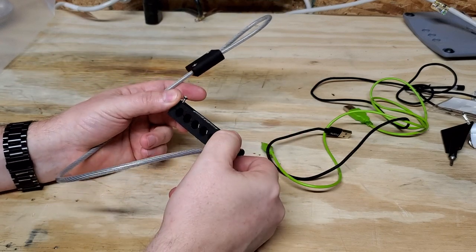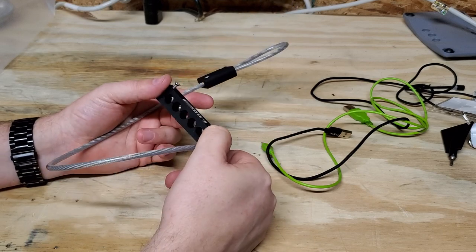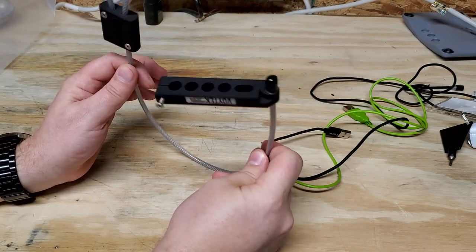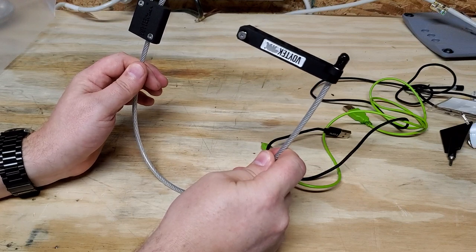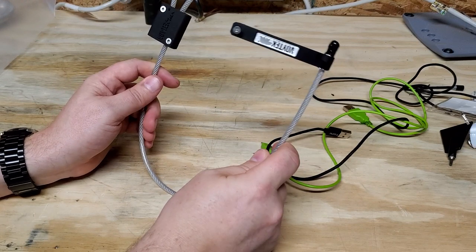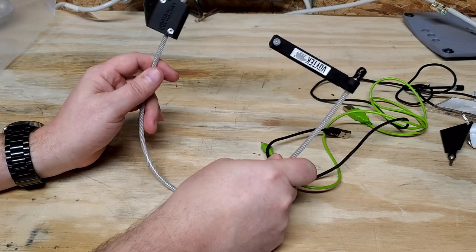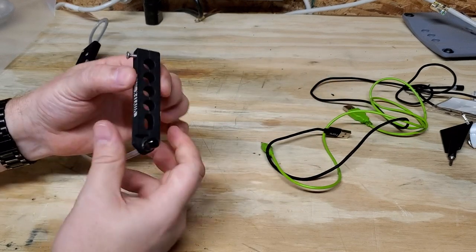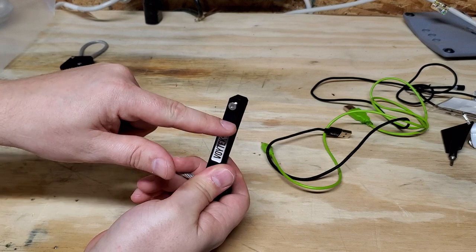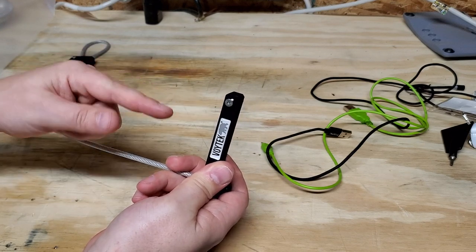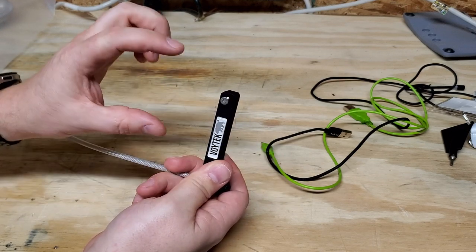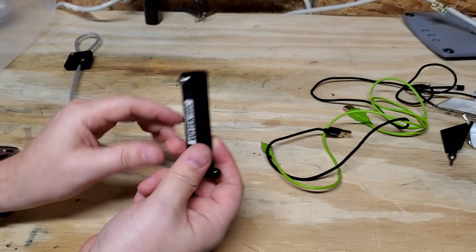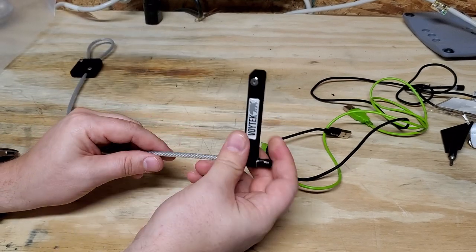every single cable that would go into this is going to be between $30 and $100. So you've got to figure SPO2 cable is easily close to $100 and you can actually loop the SPO2 cable through. So you bring it through one side, the trunk cable and the patient side you can go back that way. So you combine them on this side so that you lock down two cables with one tether.